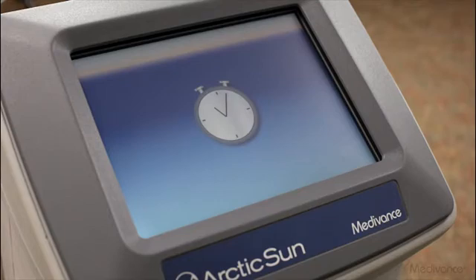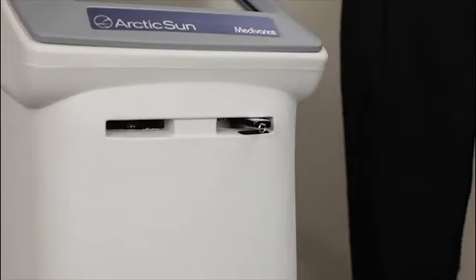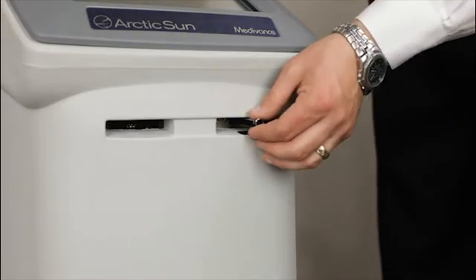The upgrade will take approximately 45 minutes. During the upgrade procedure, the device will continually beep. The screen may transition to a blank screen for up to a minute. Once the screen remains dark for over a minute, the software download is complete.